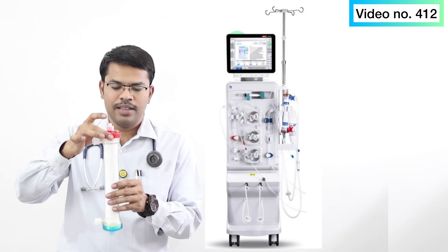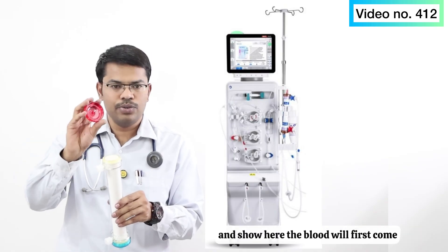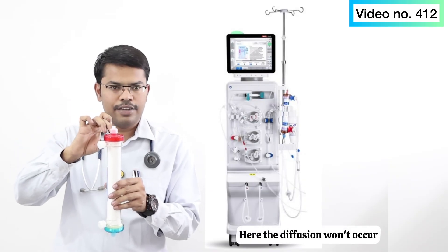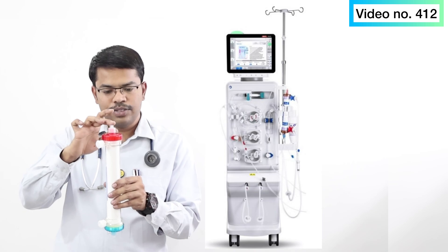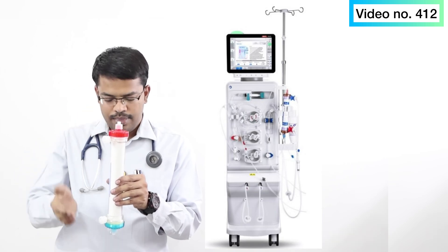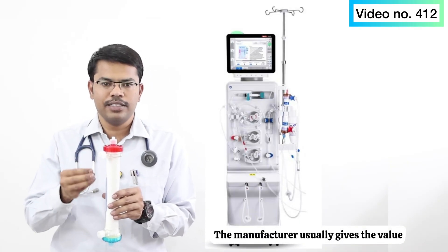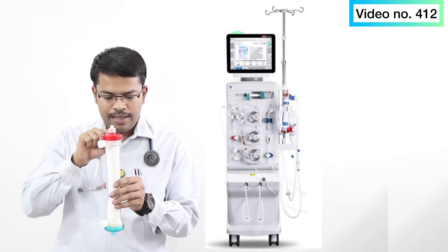In this dialyzer I can open it and show you — the blood will first come in and then enter the micro capillaries, where diffusion does not occur at the header. The micro capillaries are inside. This entire space from end to end is called total cell volume, and it varies from dialyzer to dialyzer. The manufacturer usually provides this value.